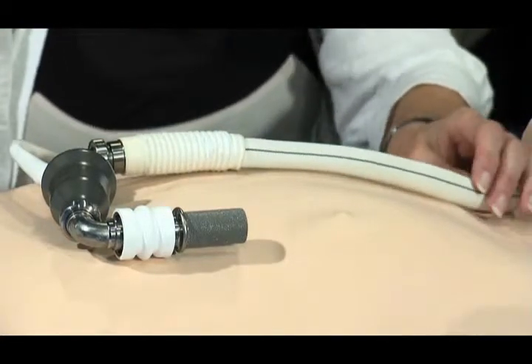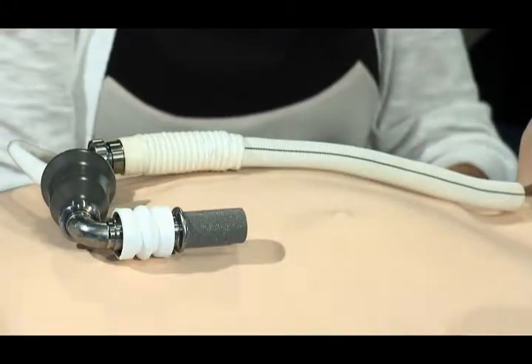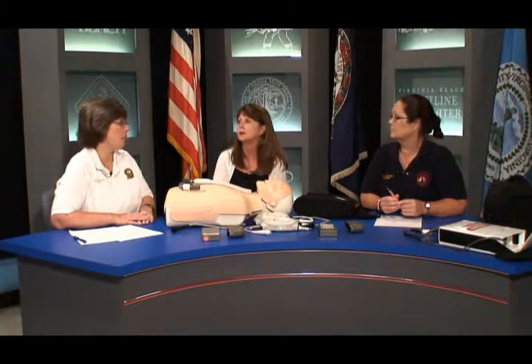What you're doing essentially is priming this pump to keep the forward flow of blood through the pump itself. If the pump is stopped, there will be retrograde flow back through the pump through the cannula. If it's stopped and not going forward, clots and thrombus will quickly start forming in the cannula and then in the pump itself. So we're just making sure there's some forward flow going through, and then get them to the hospital. During CPR you will not hear the whirling start again — just continue because you've done everything possible for the pump itself. Offset slightly from the sternum, and not as deep as normal CPR — just enough to keep that pump flowing.